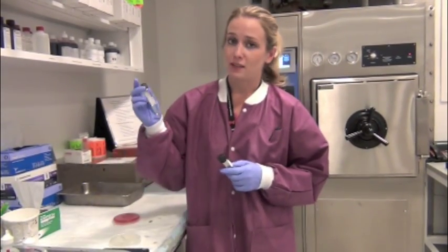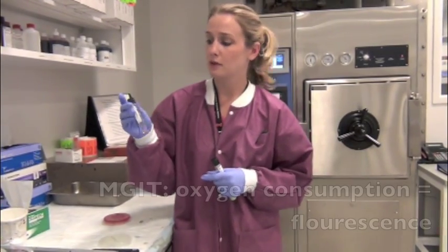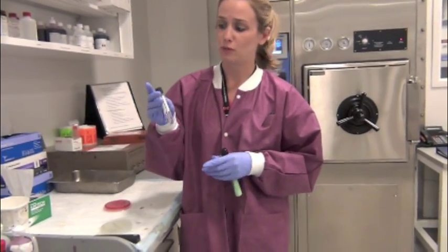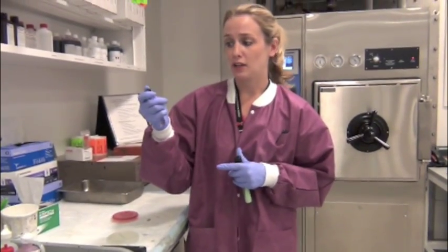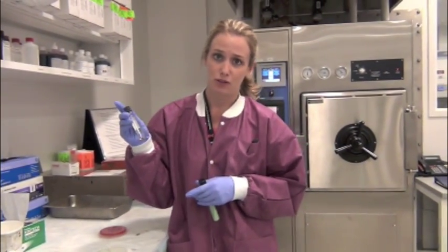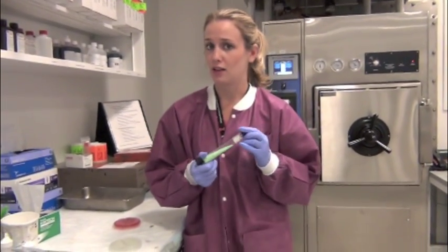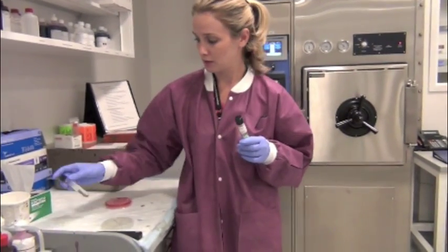Once we have found positive growth, the MGIT tube will indicate that to us by fluorescing, which occurs once all of the oxygen has been consumed within the tube. So in order for that to happen, we make sure that all of the tubes are tight so that no extra environmental oxygen can be introduced. All other culture media, we make sure to loosen the cap slightly so that oxygen can come into the culture and allow for growth.